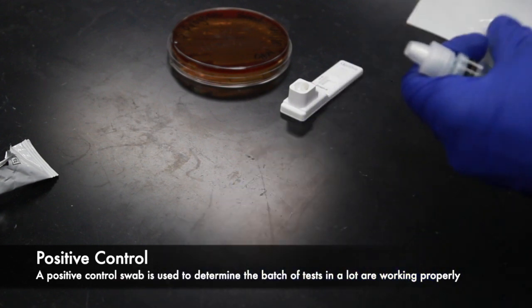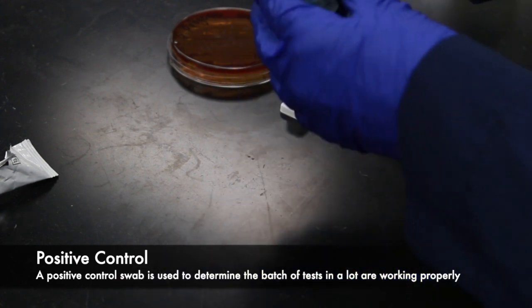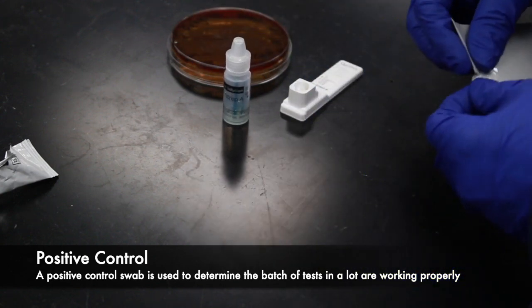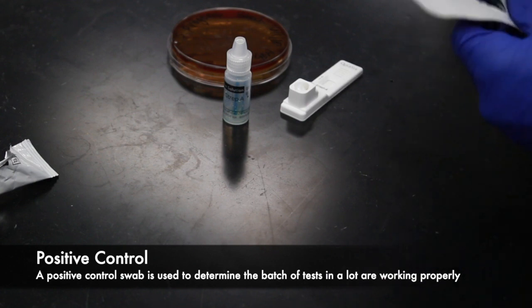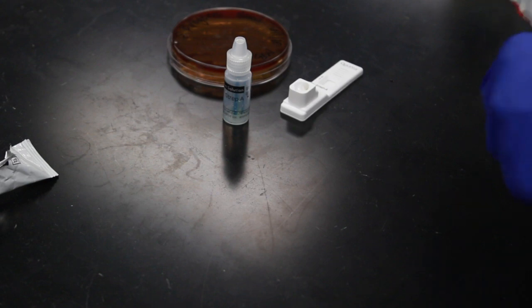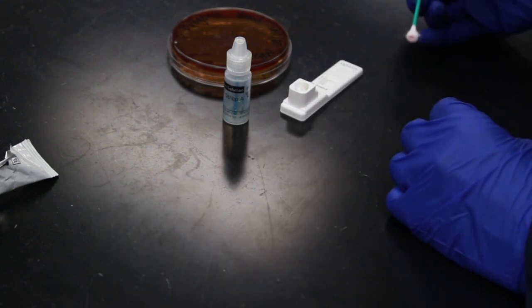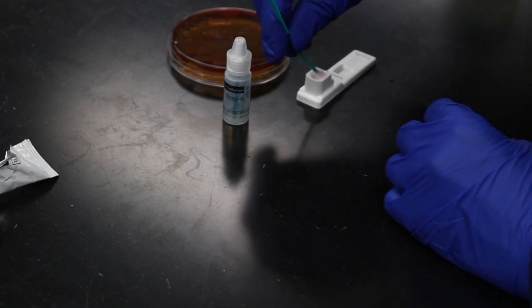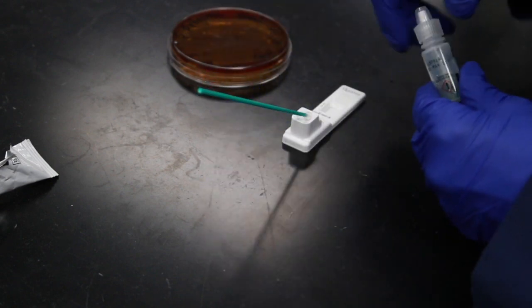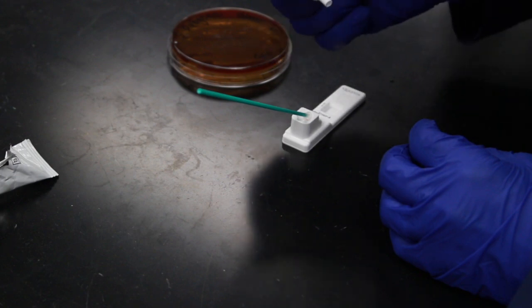A positive control is used to determine if a batch of tests on a single lot are viable. We first want to run the positive control to make sure that our test is working properly and all of the materials are fresh. Once the swab has been opened, the red dot at the end of the swab indicates that this is a positive control. No bacteria is swabbed for the positive control — the lysis buffer is added to the tube and the test result should come out as a positive.